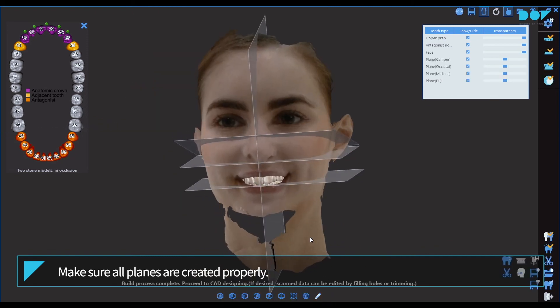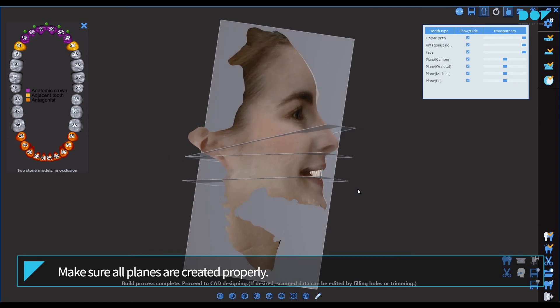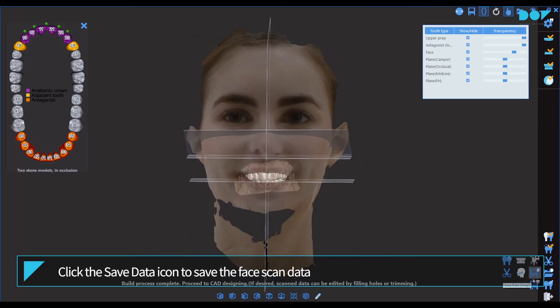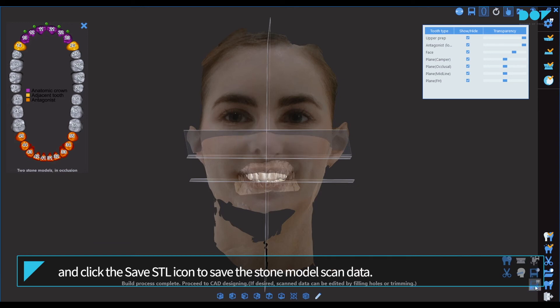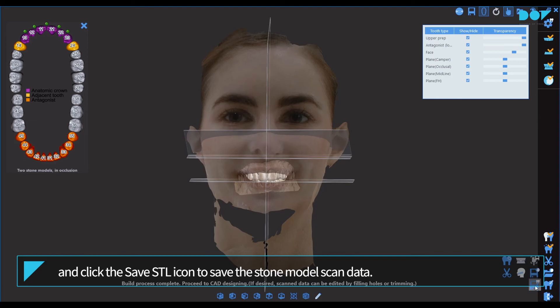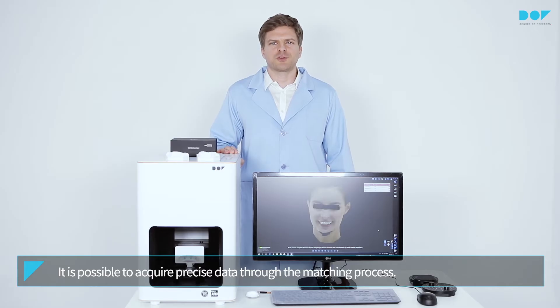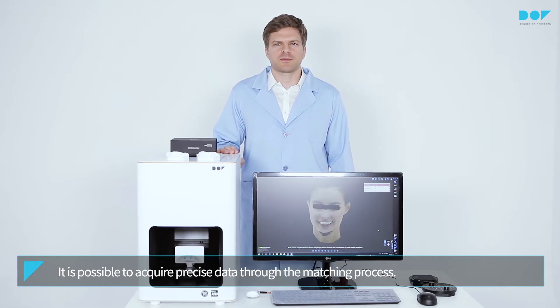Make sure all planes are created properly. Click the save data icon to save the face scan data, and click the save STL icon to save the stone model scan data. It is possible to acquire precise data through the matching process.